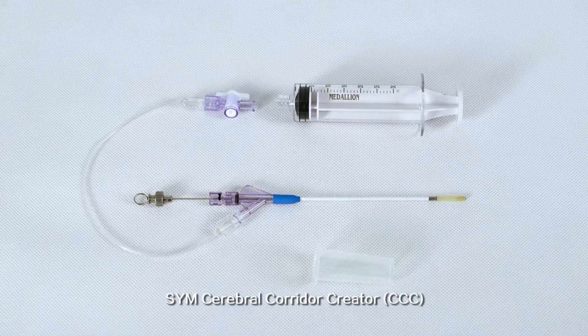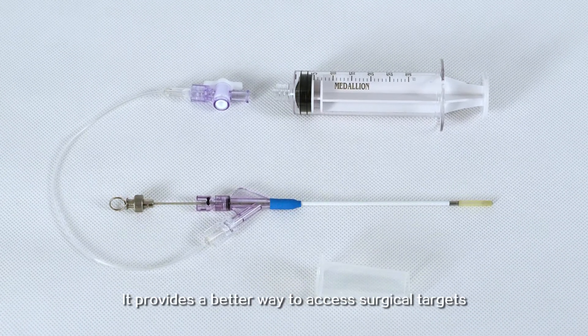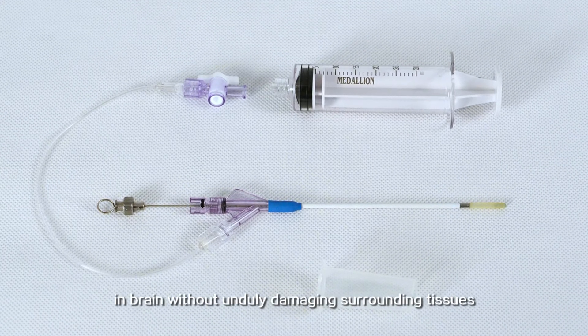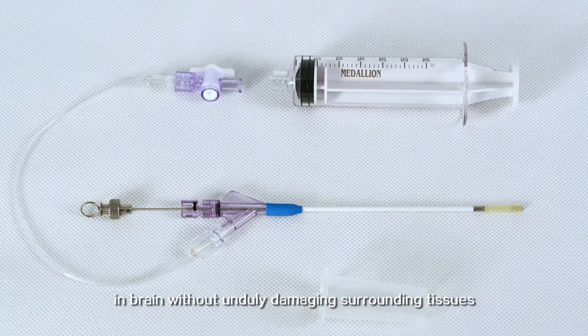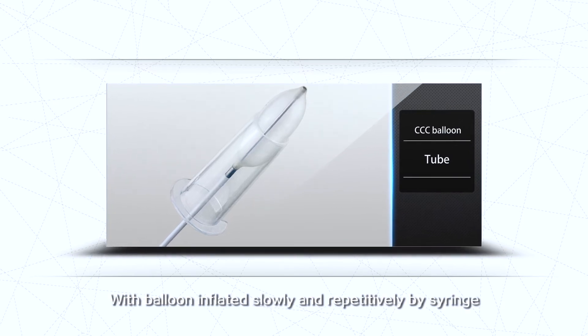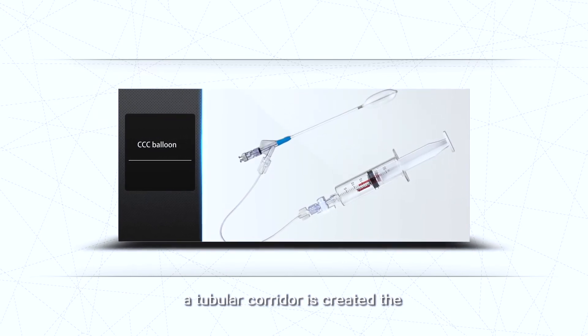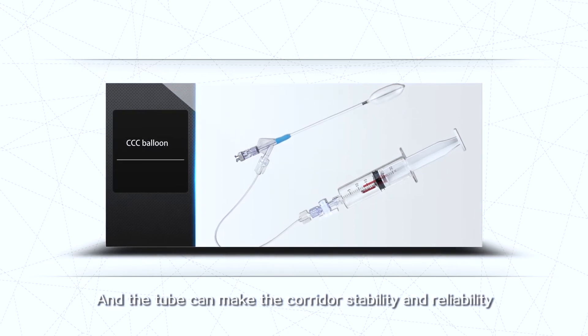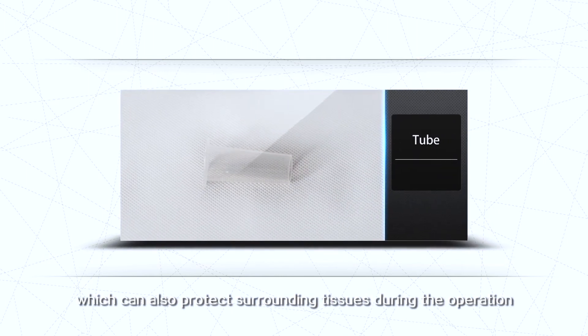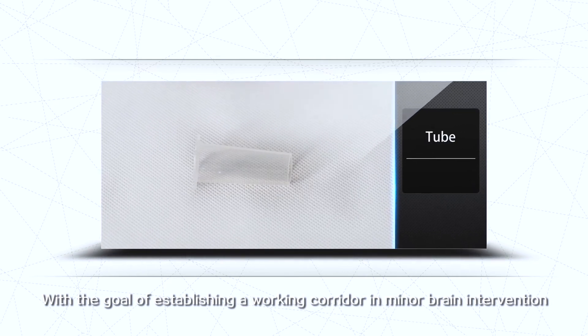The Cerebral Corridor Creator (CCC) is a specially designed medical device for neurosurgeons. It provides a better way to access surgical targets in the brain without unduly damaging surrounding tissues. CCC contains a balloon, a syringe, and a tube, with the balloon inflated slowly and repetitively by the syringe. A tubular corridor is created, collateral trauma is minimized, and the tube maintains corridor stability and reliability, protecting surrounding tissues during the operation, with the goal of establishing a working corridor in minor brain intervention.